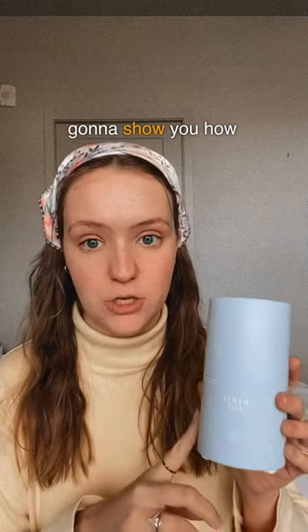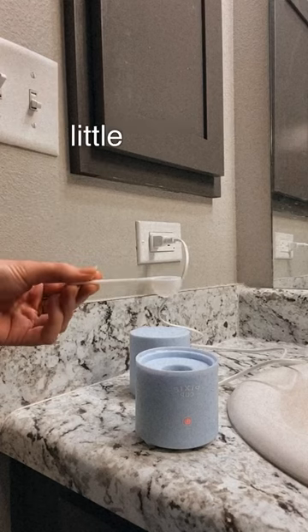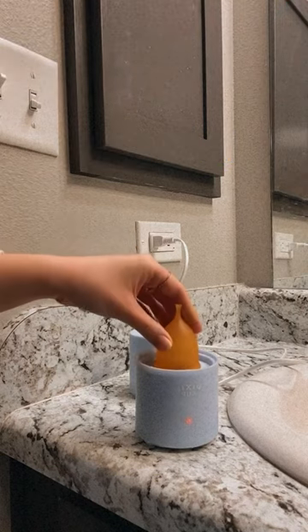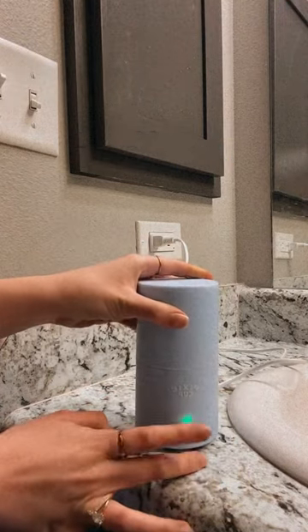I'm going to take you to the bathroom real quick and show you how easy this is to use. You're going to plug it in — it comes with this cute little scoop and you just put a scoop of purified water in there, then grab your menstrual cup, stick it right in there, and put it on top. Then you're going to press the button.